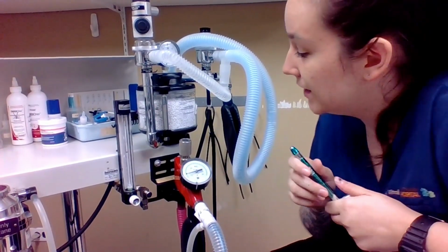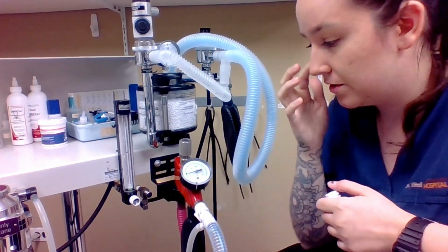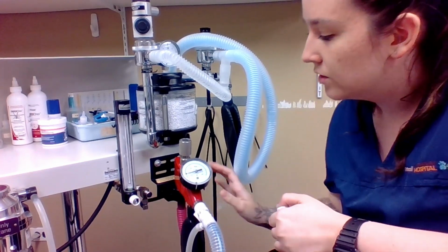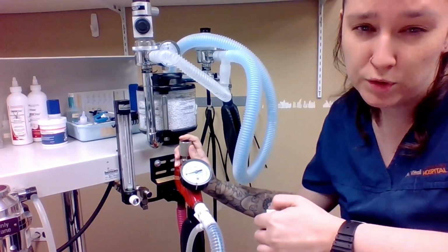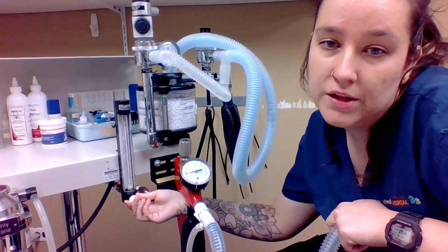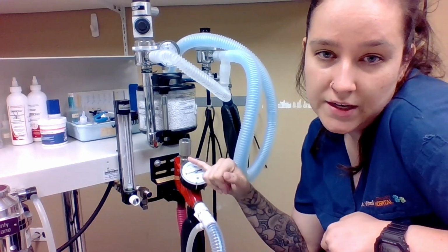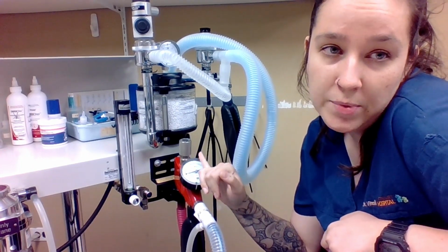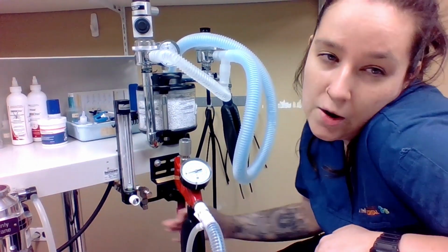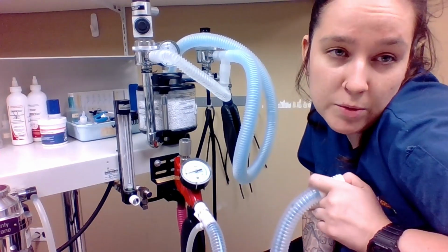Now, if we were to calculate leaks for the same system, for the Bain, it's similar to the one that we just did for the rebreathing system. So if there were to be a leak, we would just, with the pop-off valve closed and our thumb still in, we would slowly turn the oxygen back on to the point where the pressure manometer stays still or starts going up again. And then we would know, depending on where the oxygen level's at, how big of a leak we have. So it's very similar to what I just showed you with the rebreathing machine.